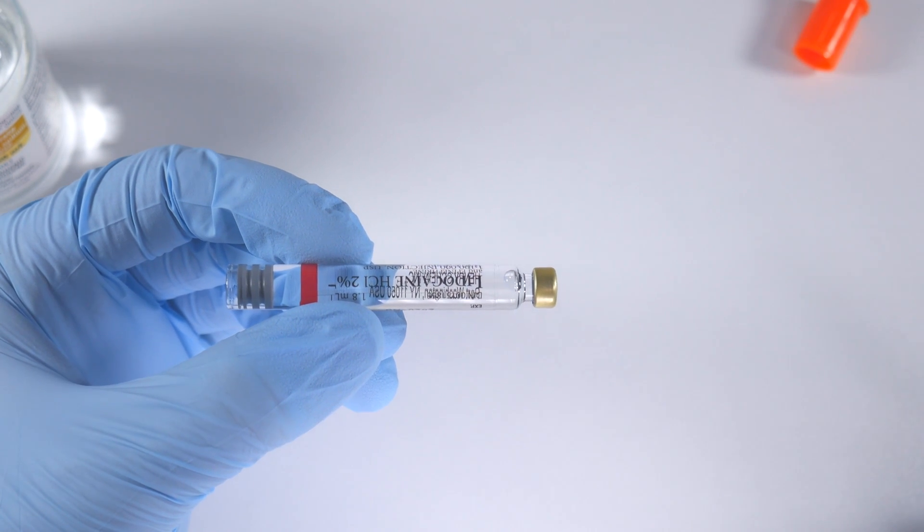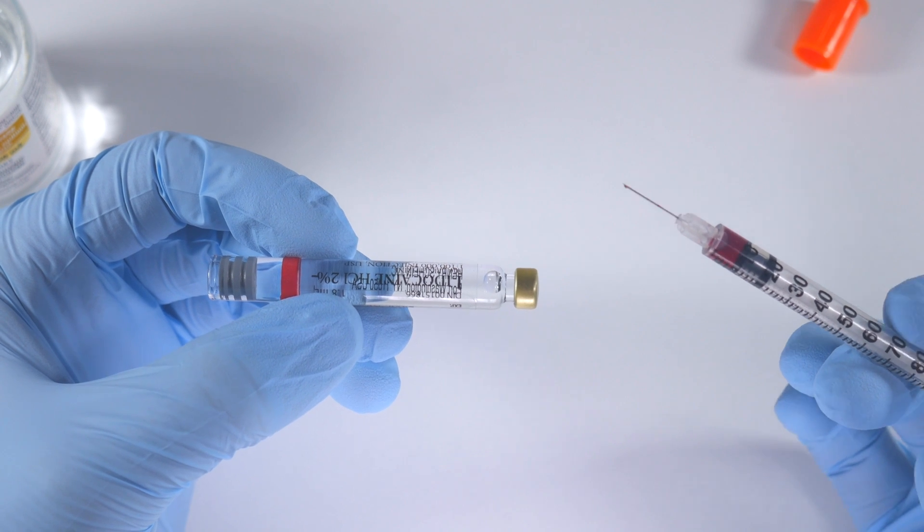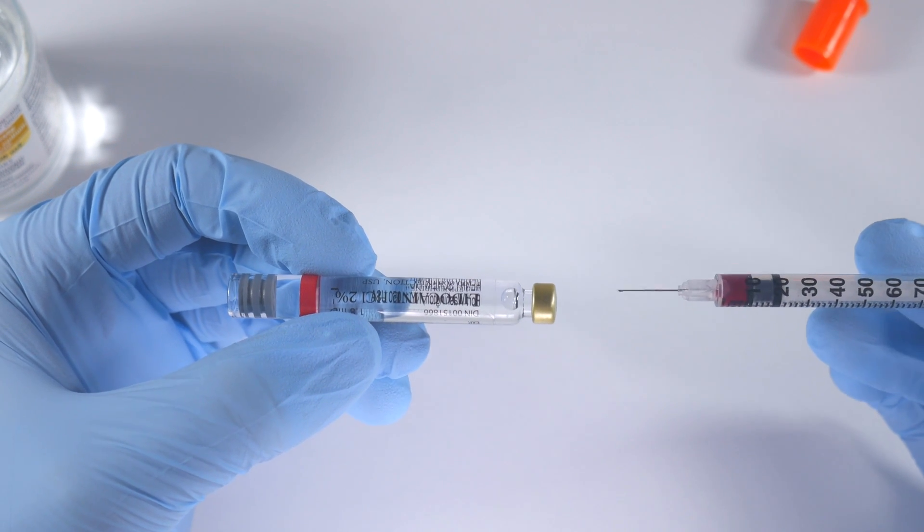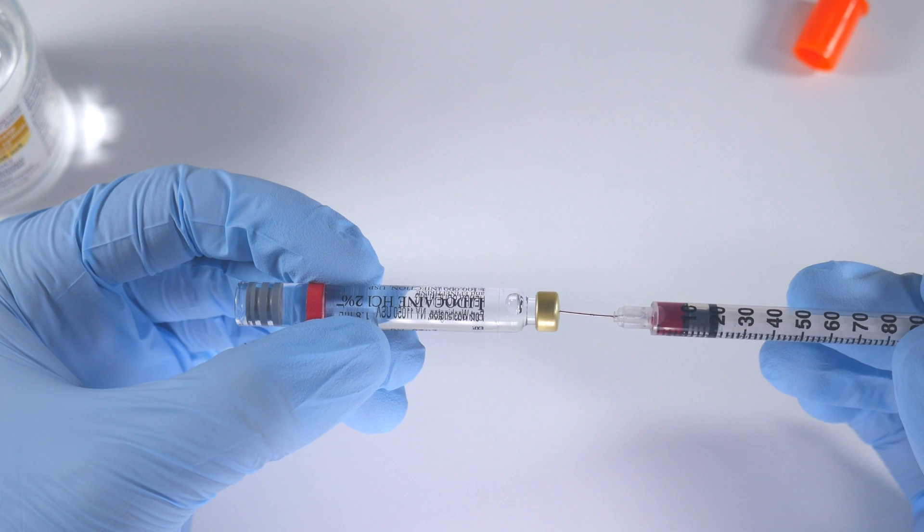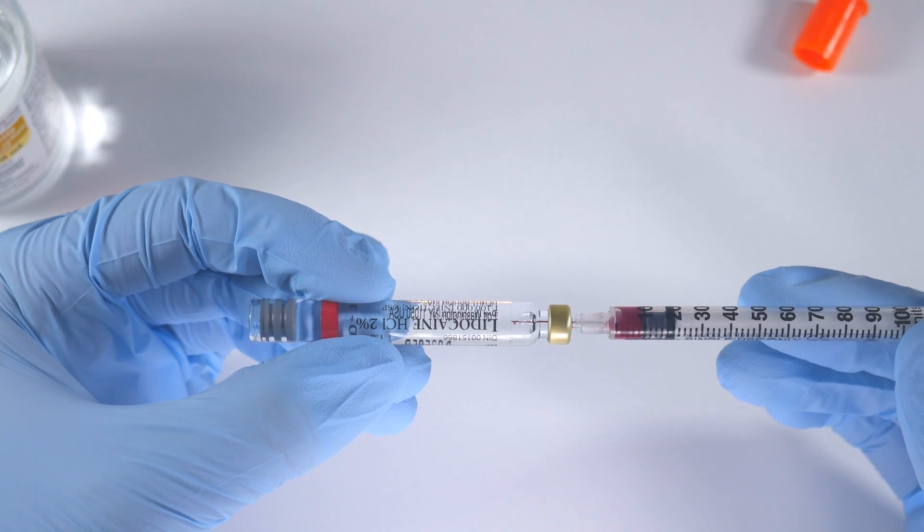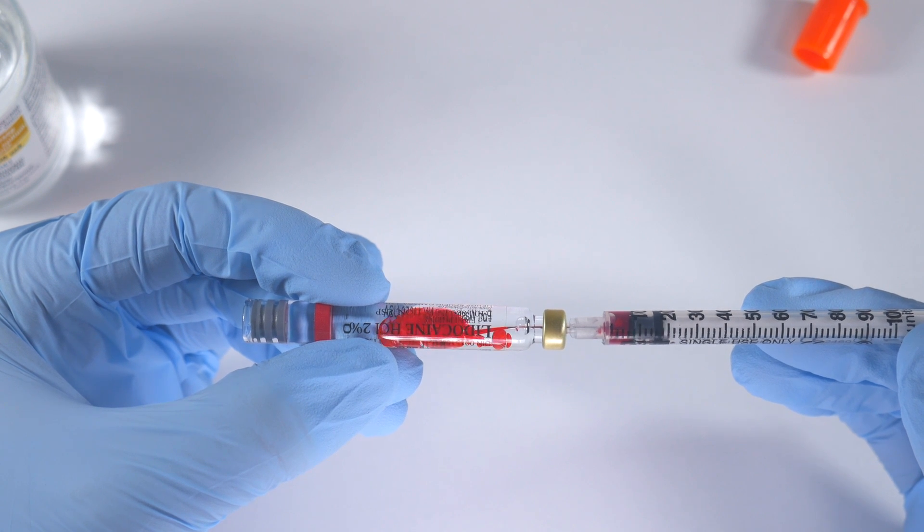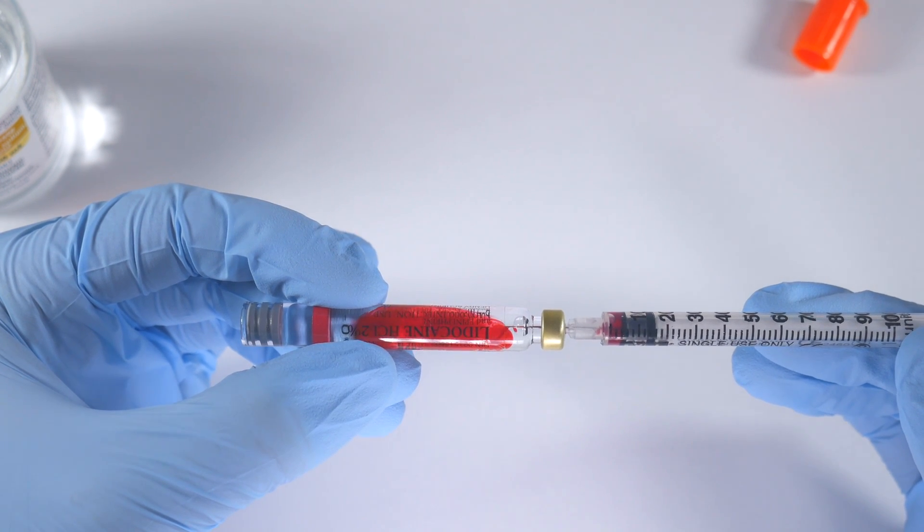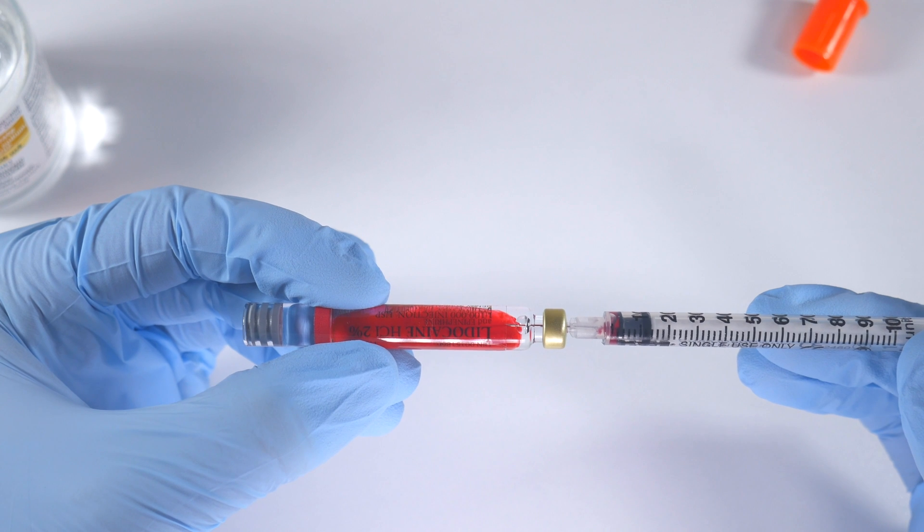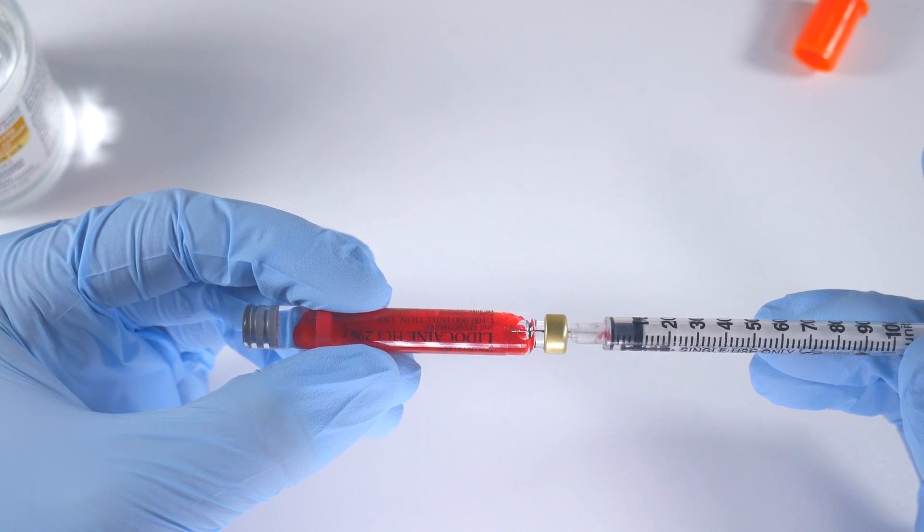So what I've done is I've loaded some bicarb with some food coloring, and you're going to be able to see exactly what happens for yourself. So I'm going to inject this now. Oh no, we forgot to aspirate! No we didn't, we're okay.